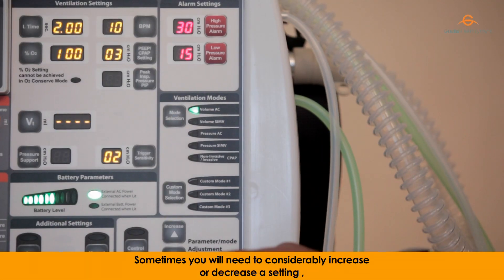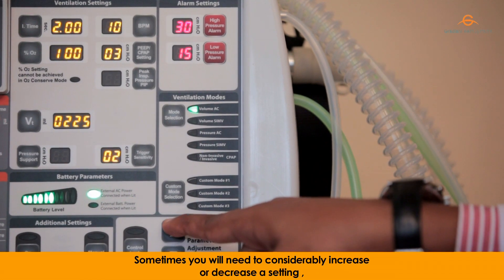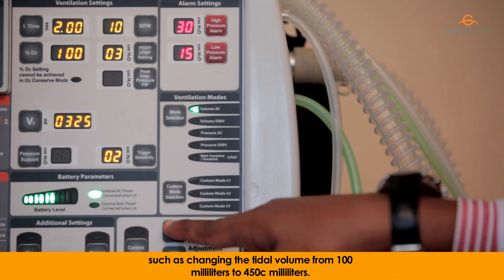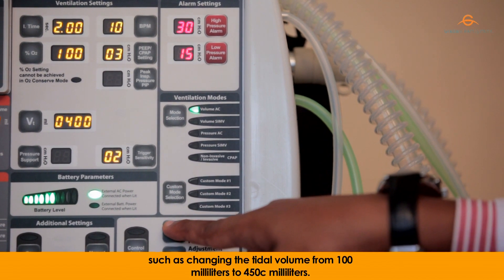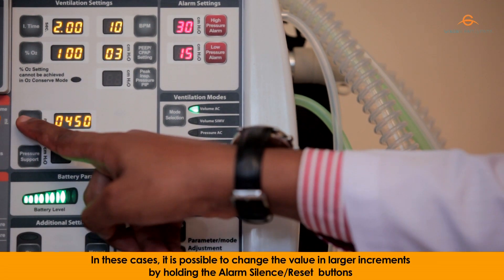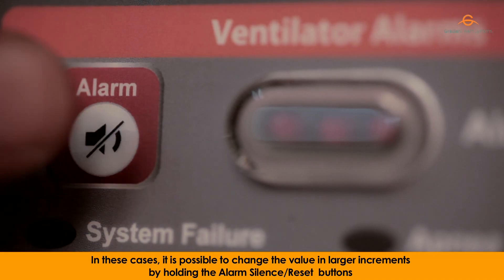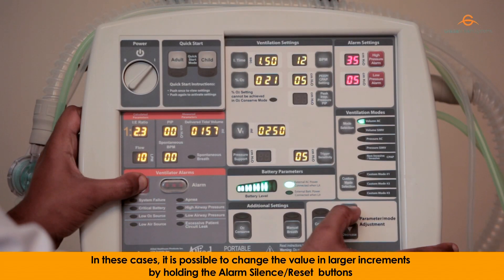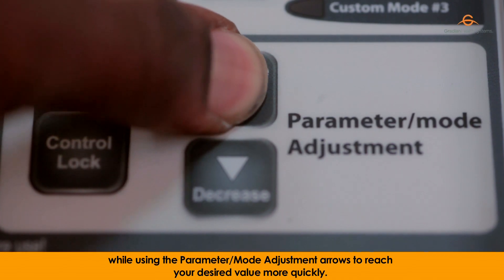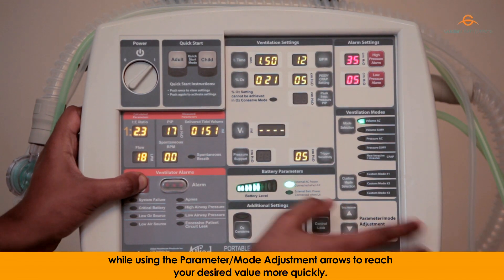Sometimes you will need to considerably increase or decrease a setting, such as changing the tidal volume from 100 milliliters to 450 milliliters. In these cases, it is possible to change the value in larger increments by holding the alarm silent/reset button while using the parameter/mode adjustment arrows to reach your desired value more quickly.